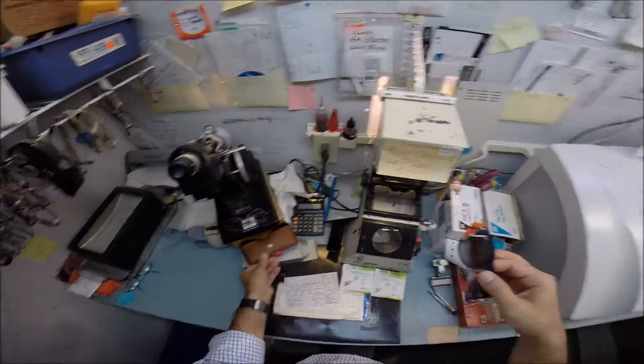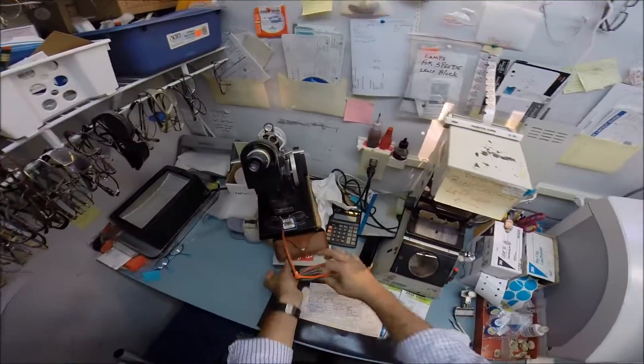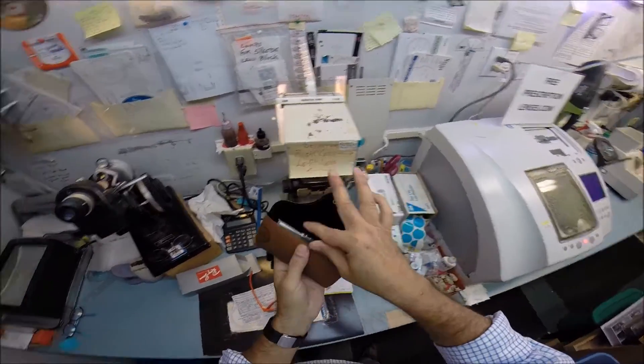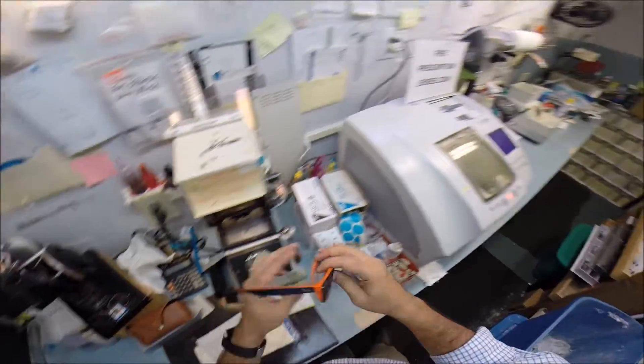Let's take everything out of its case. Of course you got somewhere hiding in here. Your Ray-Ban cleaning cloth, which is backwards and upside down, so I'll straighten that for you. Put that back inside the case.